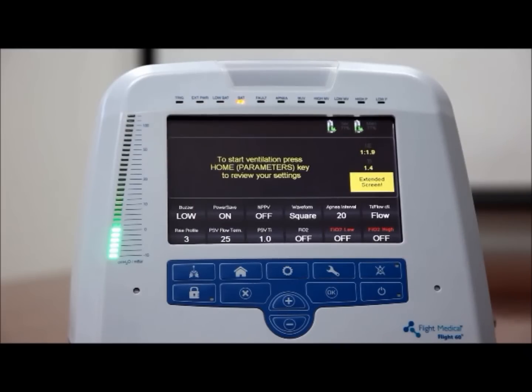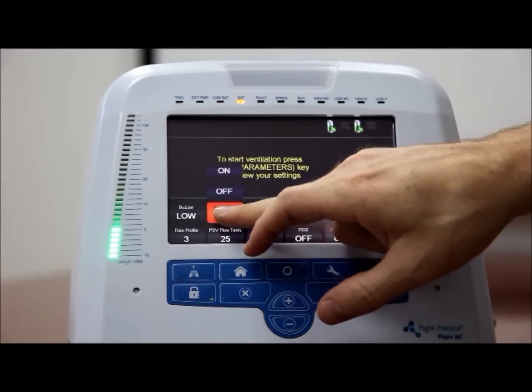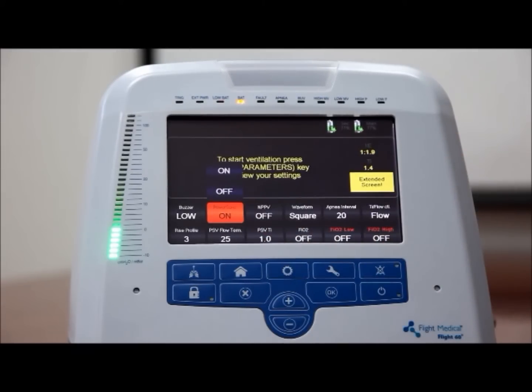Activating or deactivating power saving. You can activate or deactivate the power saving system in the AC and DC supply. When activated, the system waits 5 minutes. If during that time none of the control buttons were touched or alarms were set off, the screen turns off and the pressure gauge displays one LED only to indicate the peak pressure.